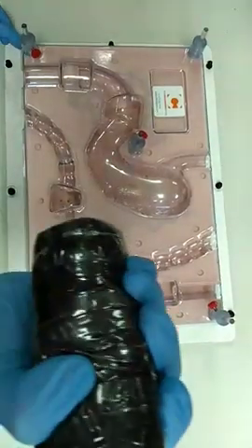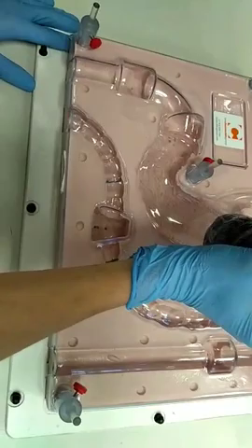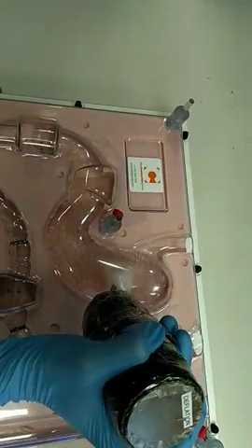You see, it will start to move already, right. The chemical reaction is starting. You don't even have to go very near, right? The balloon starts again.